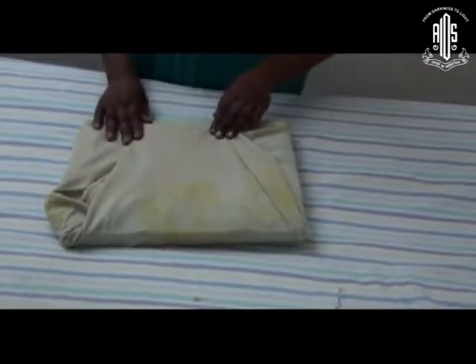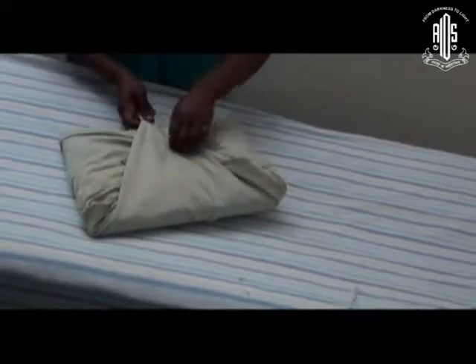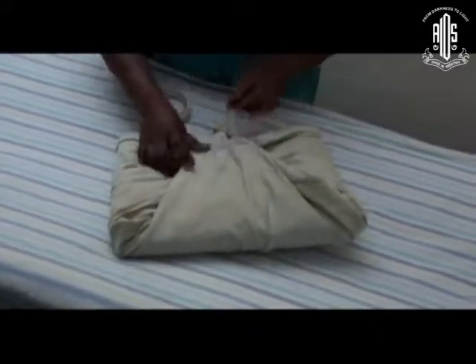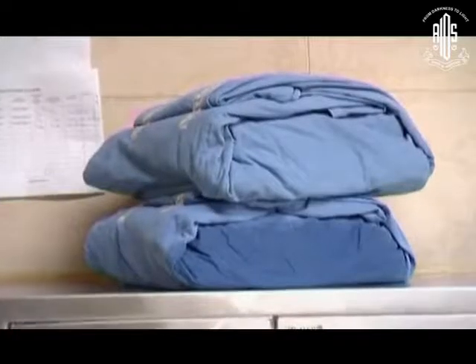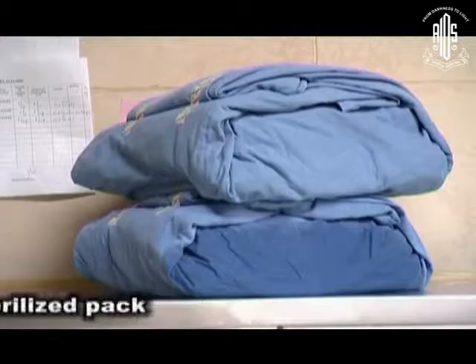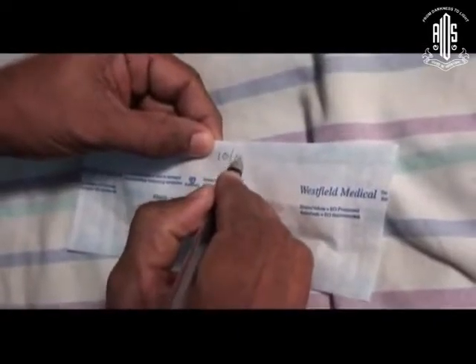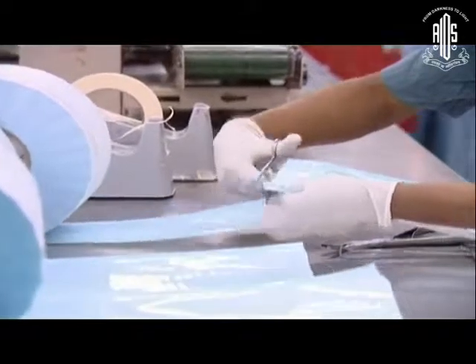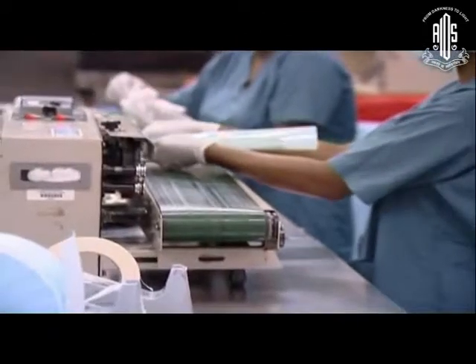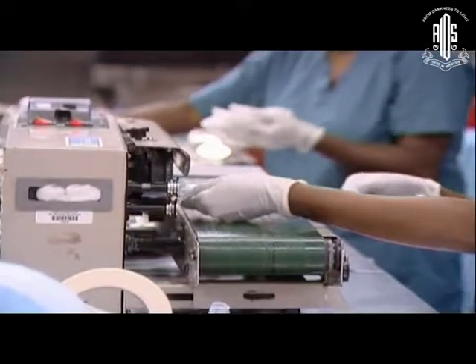Wet packs should never be used — they are unsterile. Now we have pouches: one side is paper, the other is polypropylene. You can use a double pouch for both autoclave and ETO sterilization. The shelf life is quite long, but make sure the pack seal is intact before opening and using it. Opened packs are no longer sterile.